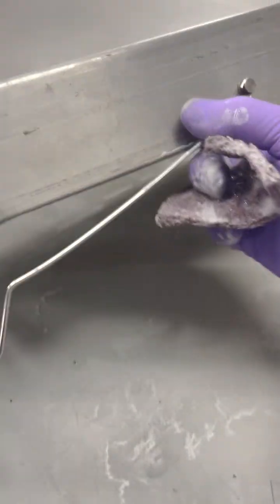Now stand it up on the side if you have anything to do in here, and give it a nice little scrub.